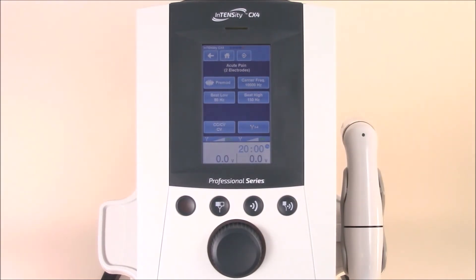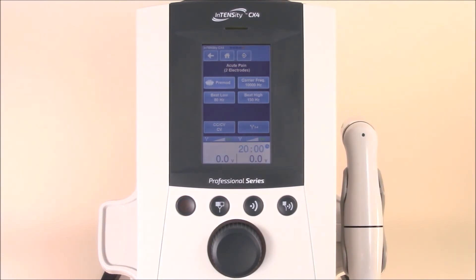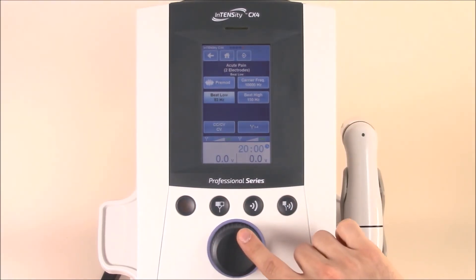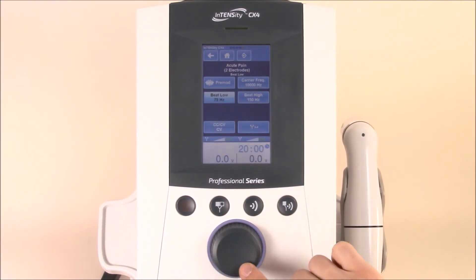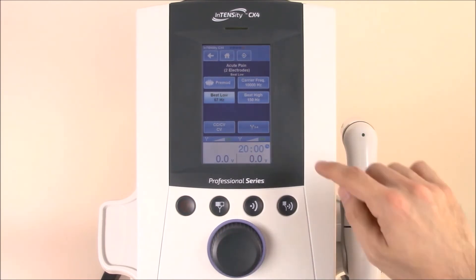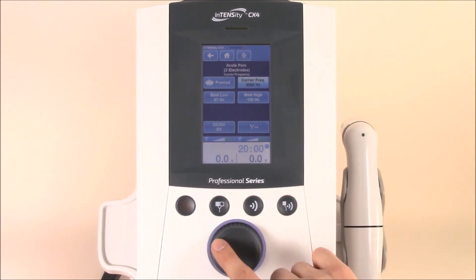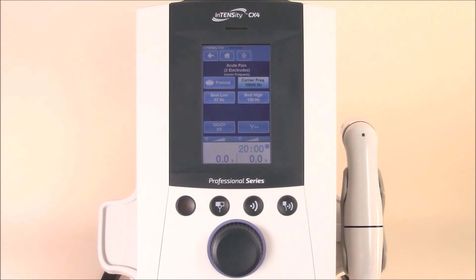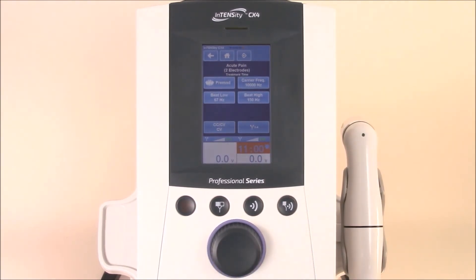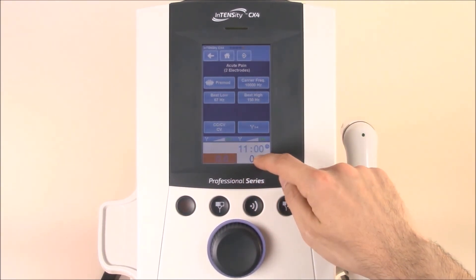Once you're on the main start screen, you'll see all of your different settings and parameters. You can easily select any of those until they're highlighted, and then toggle back and forth to adjust the settings. You can also adjust the carrier frequency all the way up to 10,000 Hz. You can adjust the timer by simply selecting the timer icon, or channel one or channel two to turn up the milliamperage.